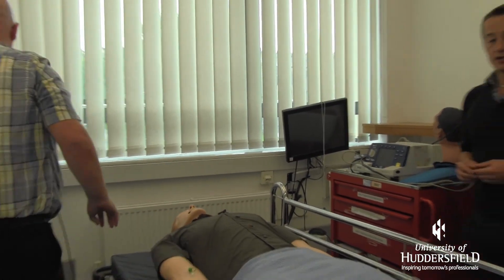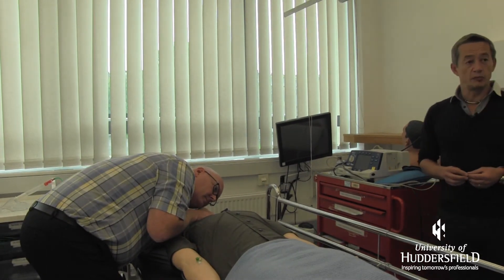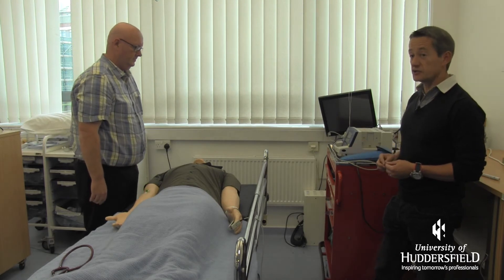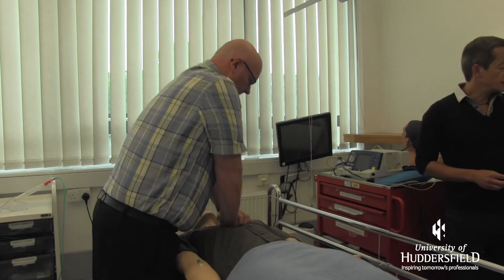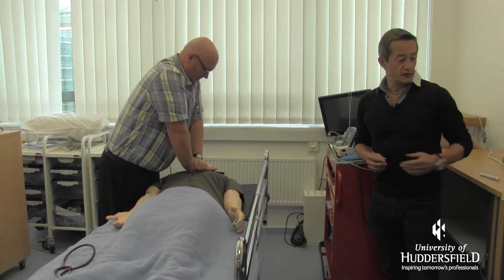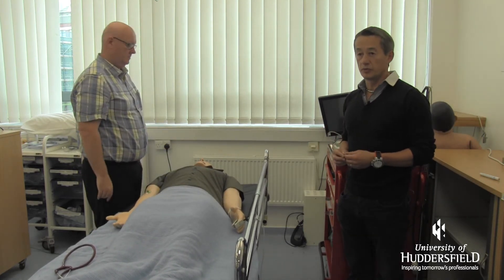Andrew is laying the patient flat because he wants to assess the airway. He's looking, listening, feeling for a pulse, trying to listen for any breath sounds — and he's doing that for 10 seconds. If there are no breath sounds he's going to start cardiopulmonary resuscitation. On the monitor it's also showing us how effective he is in this technique, and if the student is not effective we can play that back to say: you weren't doing it quickly enough, you weren't doing it strongly enough, or you were placing your hands in the wrong place. It's a really good example of practicing this in a safe environment.